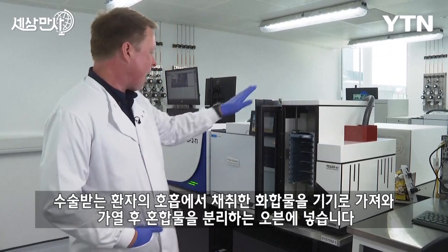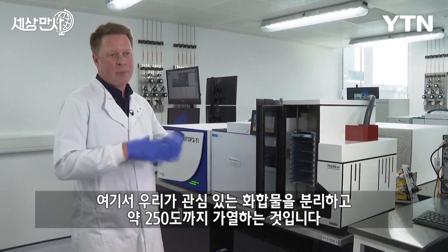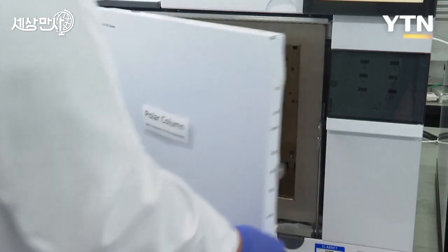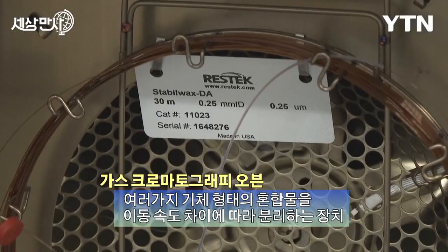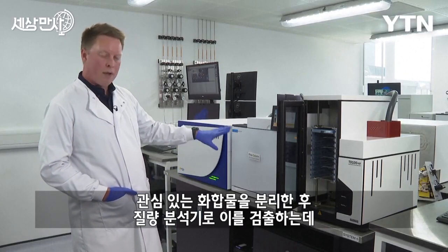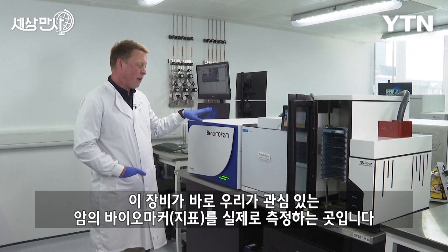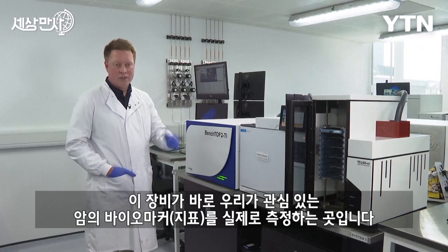That is then heated up and goes into our oven, our gas chromatography oven. This is where we separate the compounds that we're interested in, and we do that here. And it heats up to approximately 250 degrees. And then after we separate the compounds of interest, we then detect them with our mass spectrometer, and that's this instrument here. And that's where we actually measure these potential biomarkers for the cancers that we're interested in.